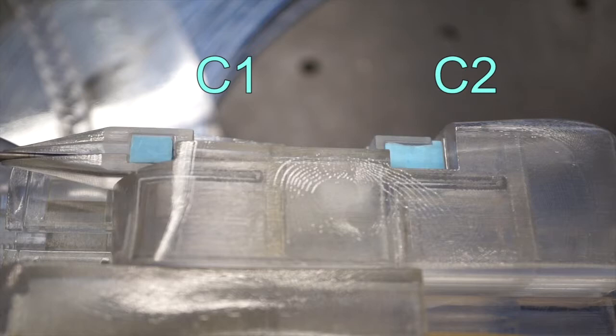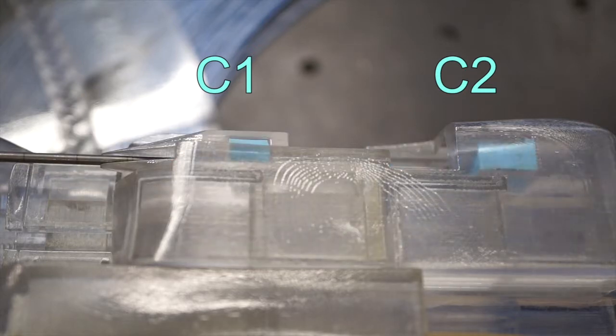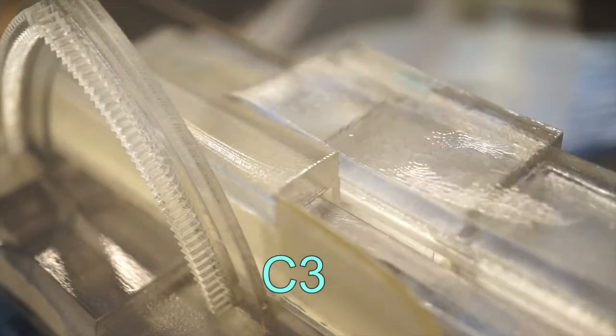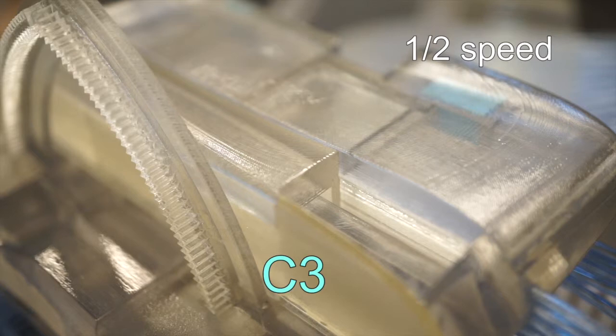These 2 cylinders trigger the biopsy gun mechanism. The third cylinder drives the emergency needle ejection mechanism.